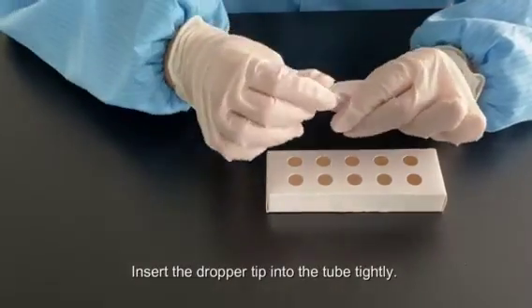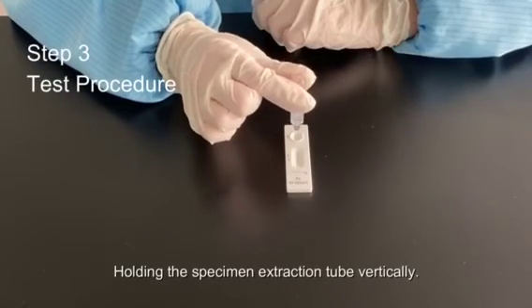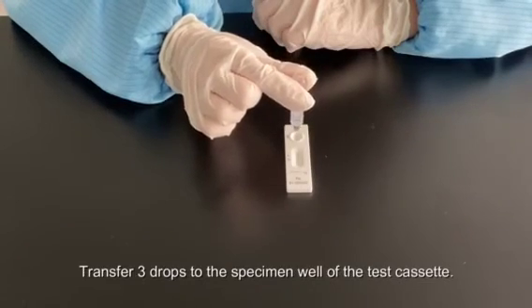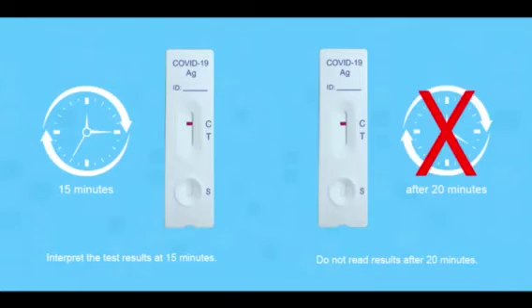Insert the dropper tip into the extraction tube tightly, holding the specimen extraction tube vertically. Transfer 3 drops to the specimen well of the test cassette. Interpret the test result at 15 minutes. Do not read the result after 20 minutes.